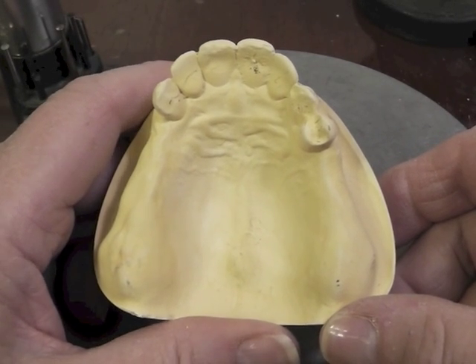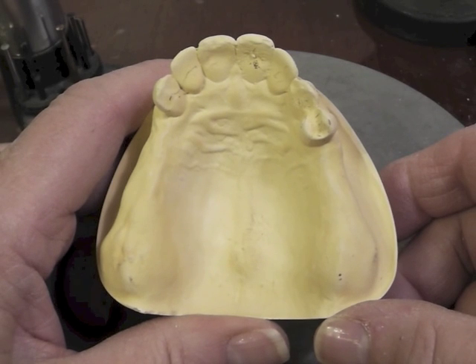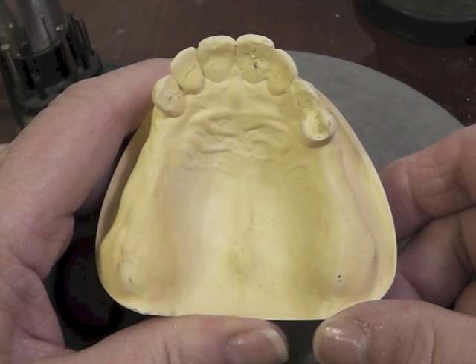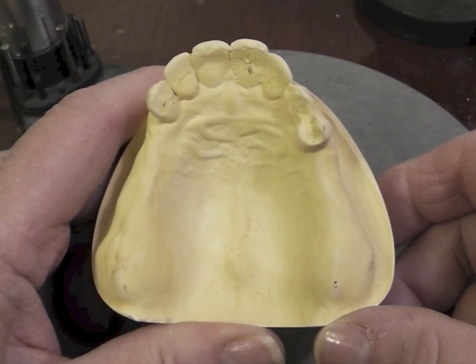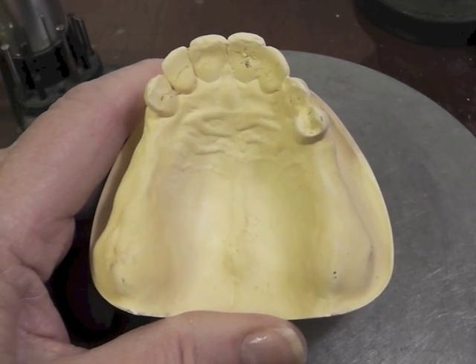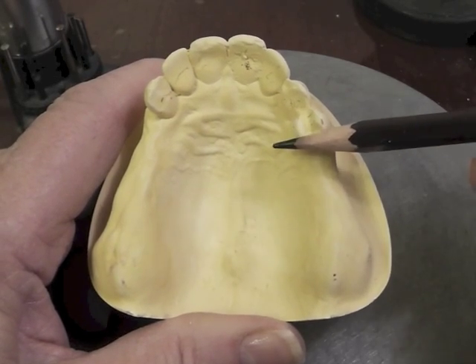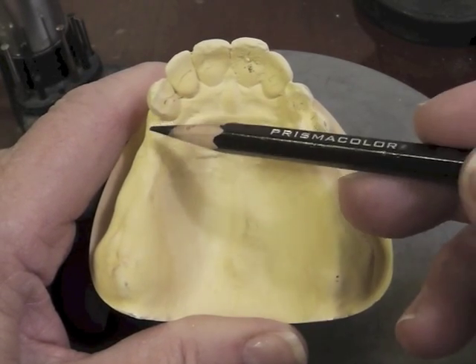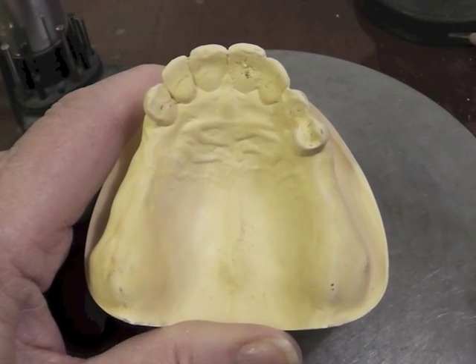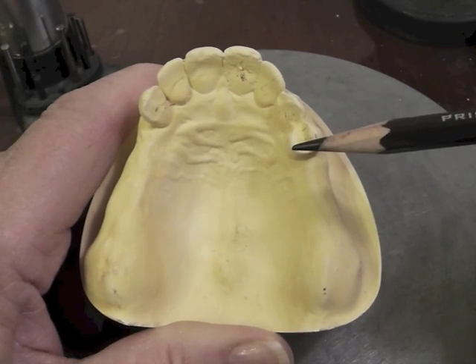This is the Kennedy Class 1 cast number 1 that is available at the dispensary window if you are doing the RPD seminar. It is a Kennedy Class 1 because we have bilateral edentulous areas posterior to the remaining natural teeth. That is the definition of the Kennedy Class 1.